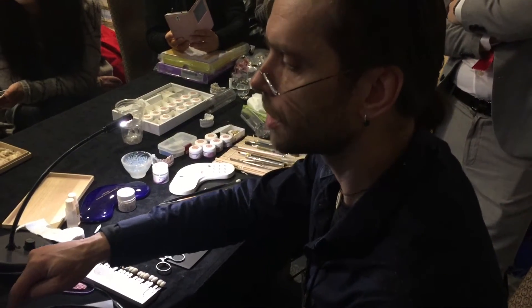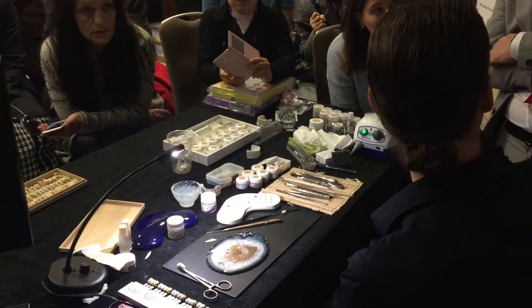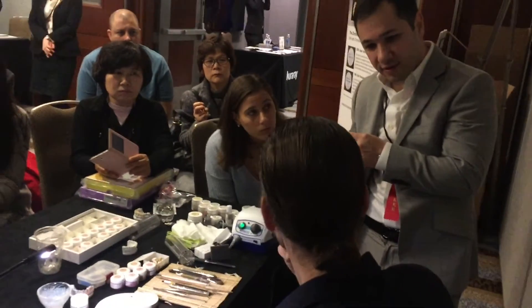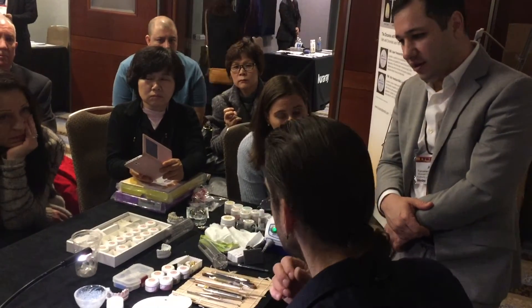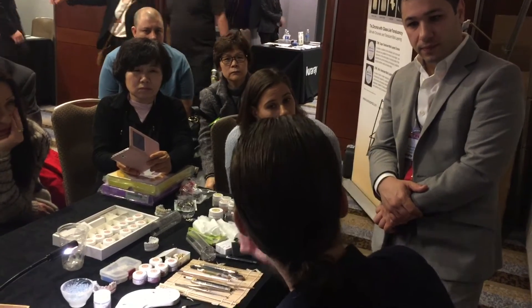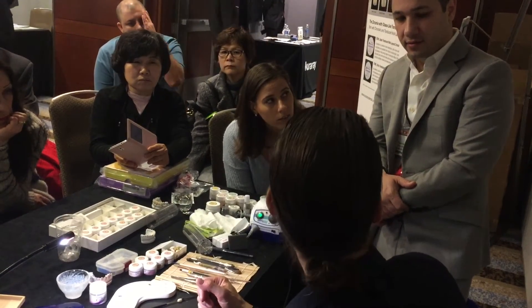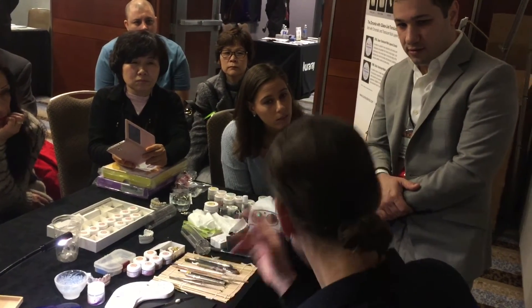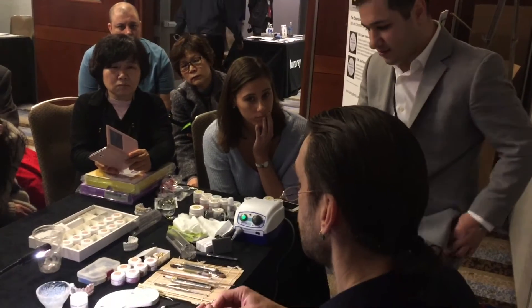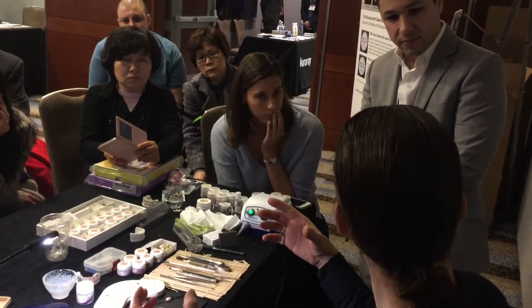Another secret: have you had a problem with Norivest dies being like a sugar cube — not very dense, with pits and rough surfaces? Yes? Do you use a pressure pot? Press, wait 30 seconds, then release the pressure. No — you release pressure after 30 seconds, then let it air-set. No vacuum mixing — don't bother. Hand mix it.